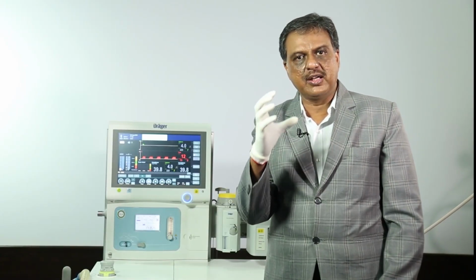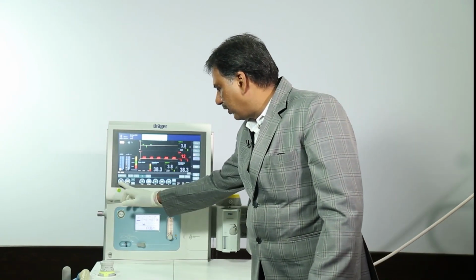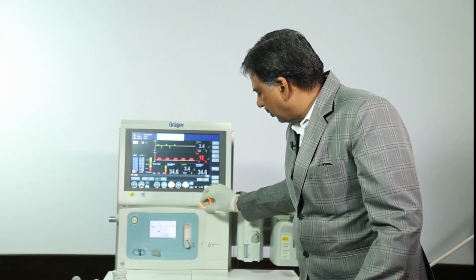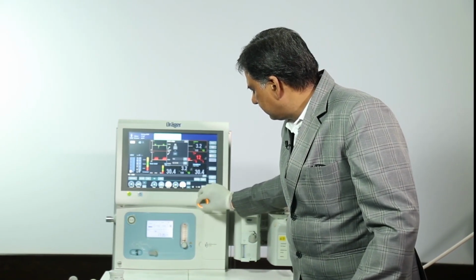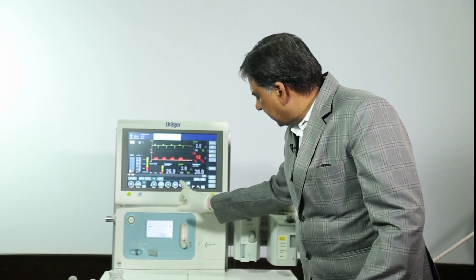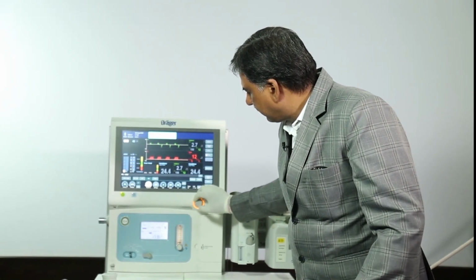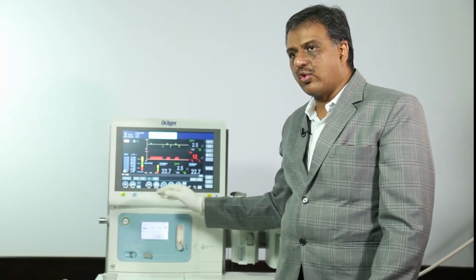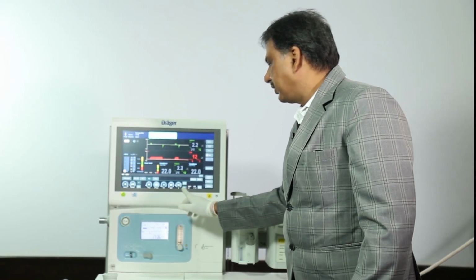Another way of delivering vital capacity maneuver is with pressure control ventilation. Change the setting: keep the FiO2 40%, change the respiratory rate to 4, keep the inspiratory time 7.5 seconds and increase the pressure to 40. So, this setting will deliver 40 centimeter of sustained pressure for 7.5 seconds of inspiratory time.